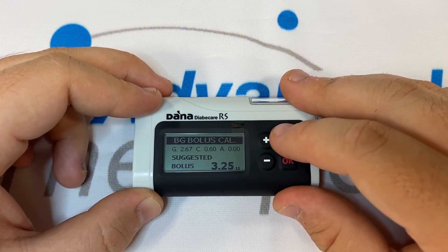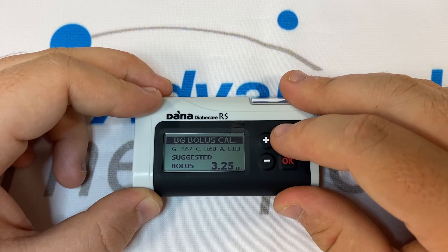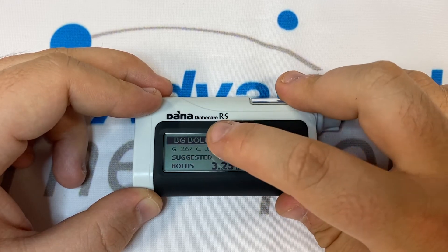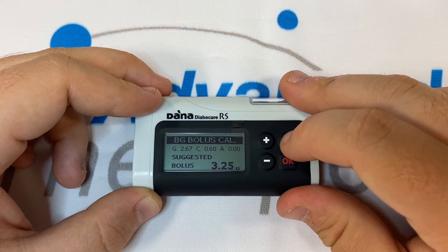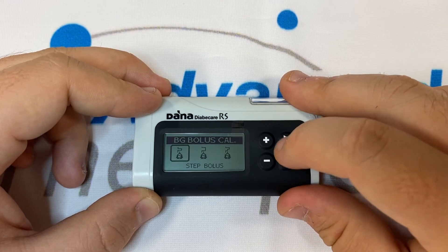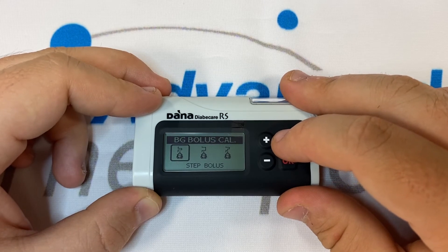Once we're happy with all of these numbers we can press OK. The pump will show us the suggested bolus as well as a split across the top — G is for glucose, C is for carbs and A is for active insulin.